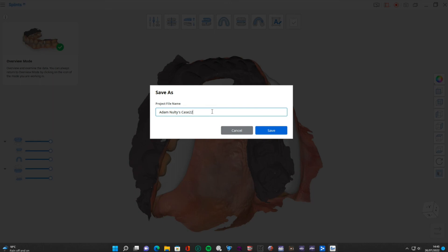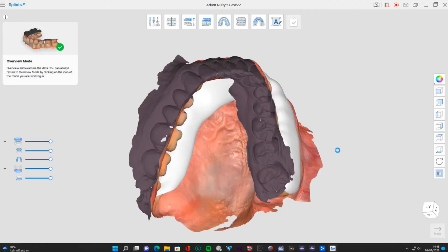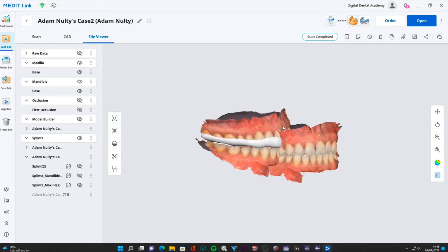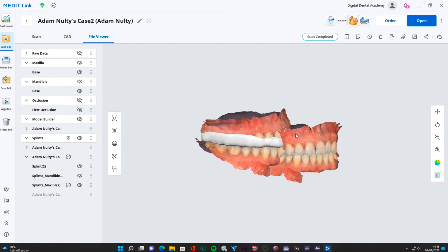I'll save it under a new name, so I've got both options there and I could even potentially print both. You can see just a slightly different shape from the version I designed versus the AI version. You might prefer the AI one - I would probably be happy trying it out because that would have taken all of 10 seconds as opposed to five minutes. But with the manual workflow you can customize things how you want and it's still a very streamlined and easy process. We'll go through the same thing with Exocad and inLab - look out for those tutorials over the next few days.